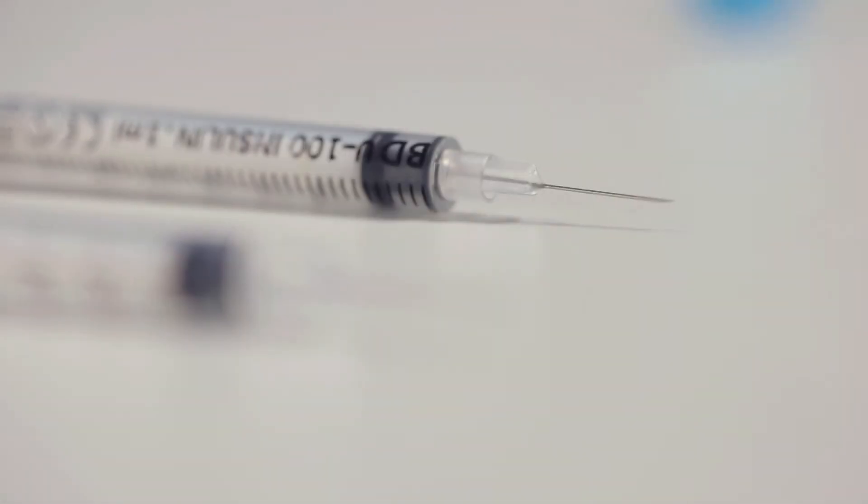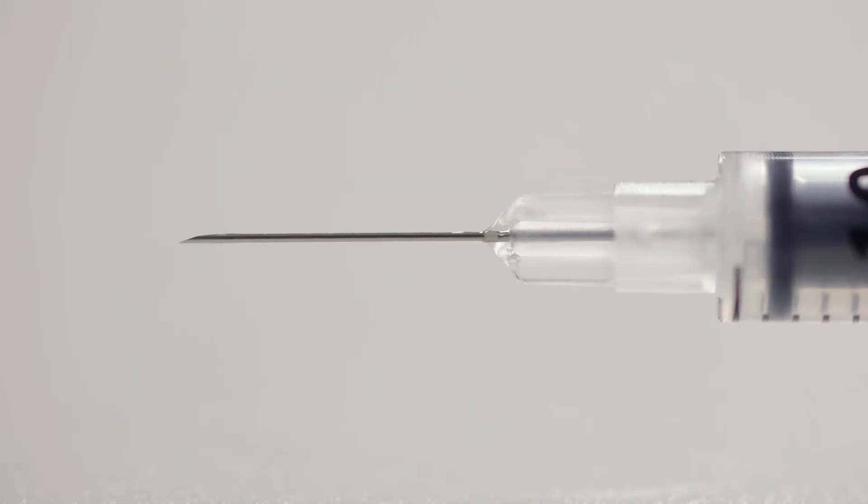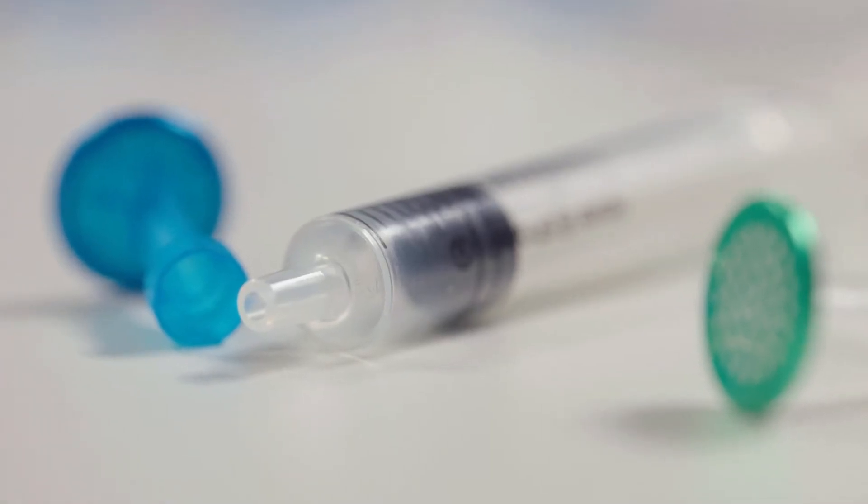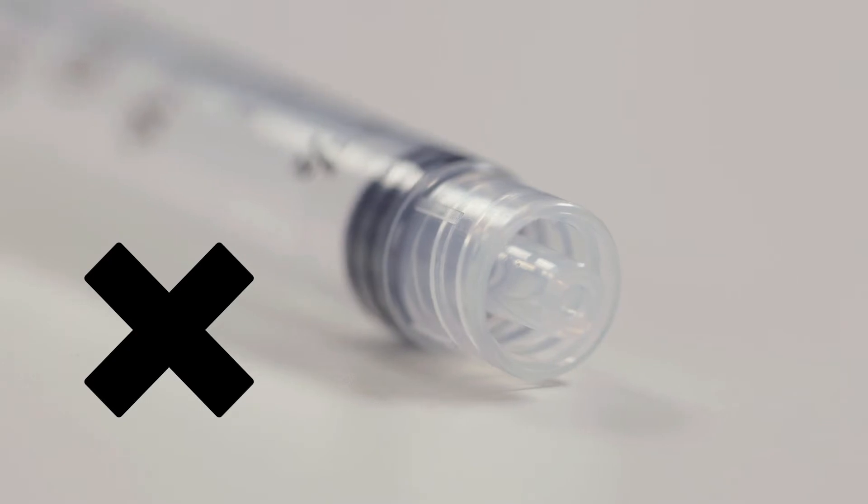SteriFilt filters are compatible with the most common syringes used for injection drugs, whether with a fixed needle or needleless with Luer slip tip. However, SteriFilt cannot be used on needleless syringes with Luer lock tips.